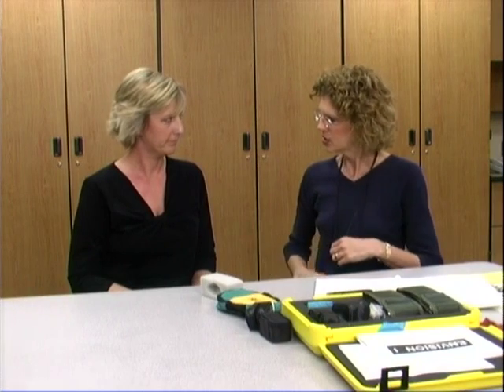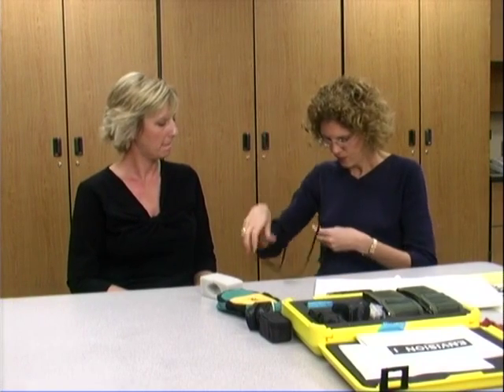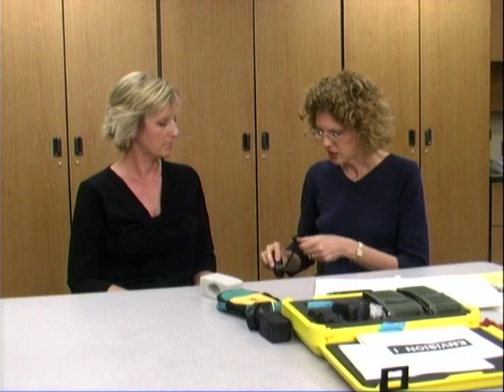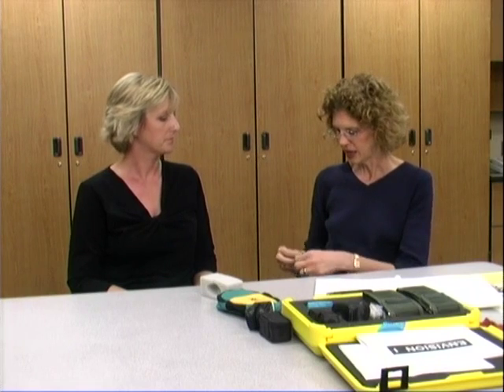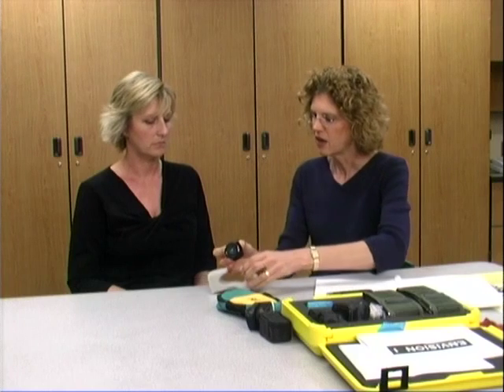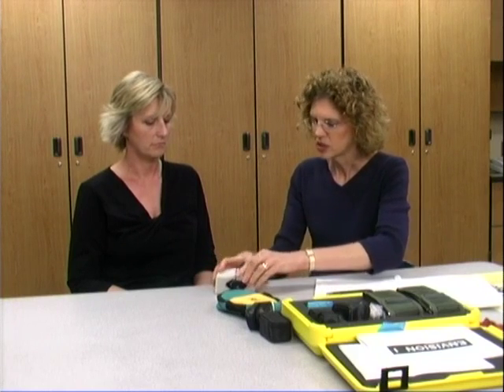So that's basically it — keeping it safe. We really need the team approach. If he just uses it with me, he's never going to get the opportunity to really get familiar and comfortable enough with it in classroom situations. Maybe if you could even set up a lesson for him. Anything that's helpful to Brandon is always welcome in my classroom — I just needed to know how to use it properly.